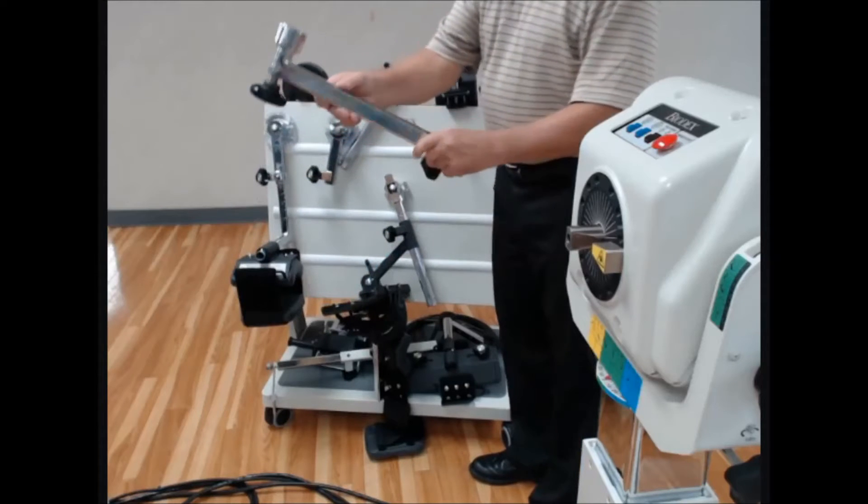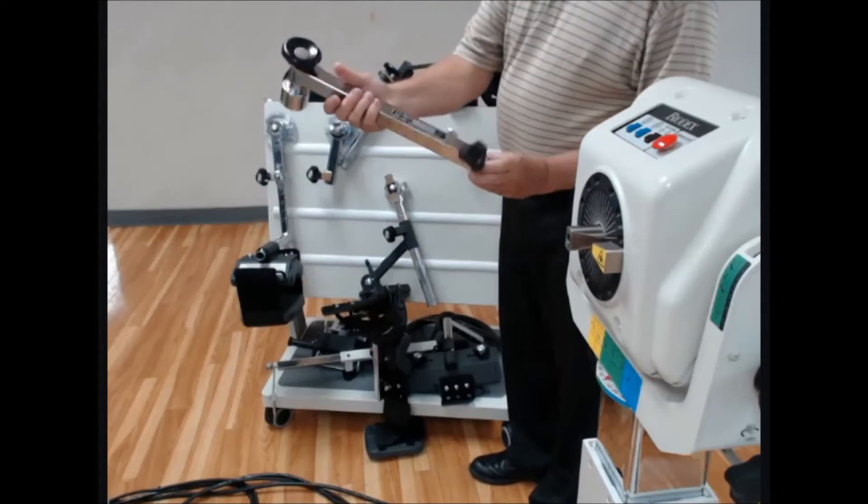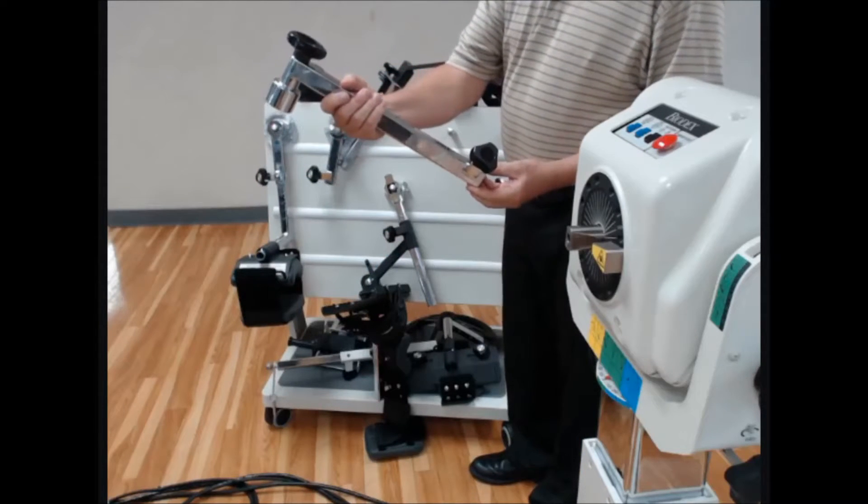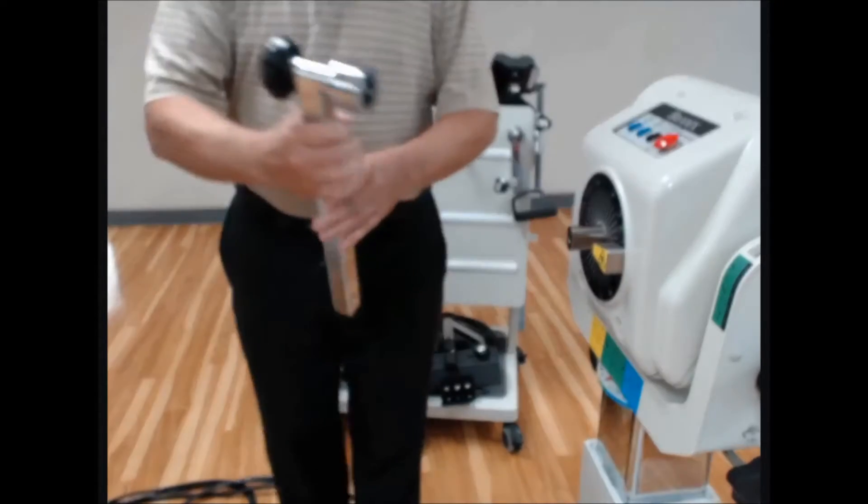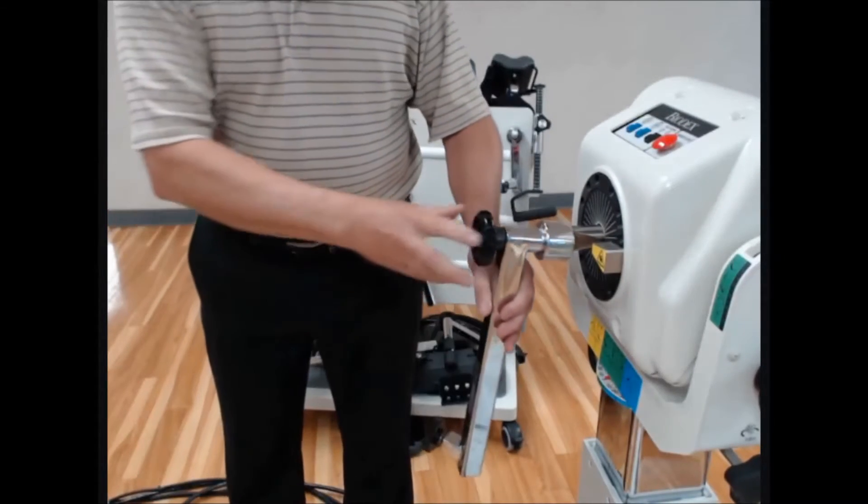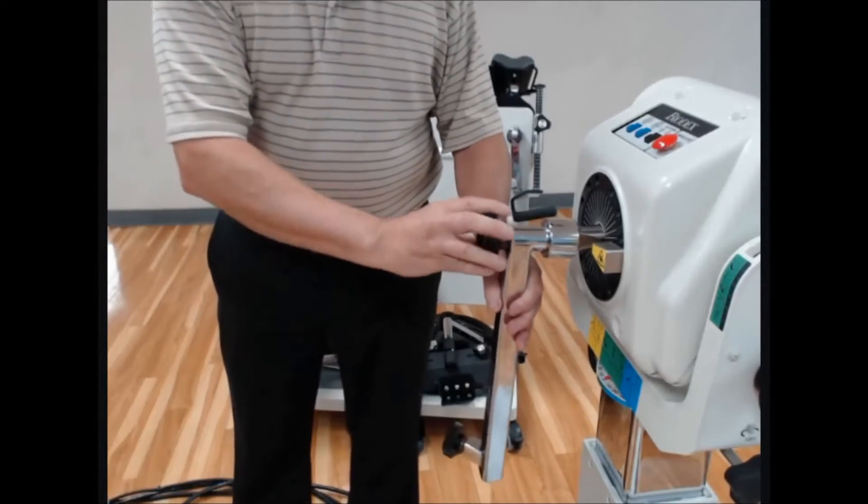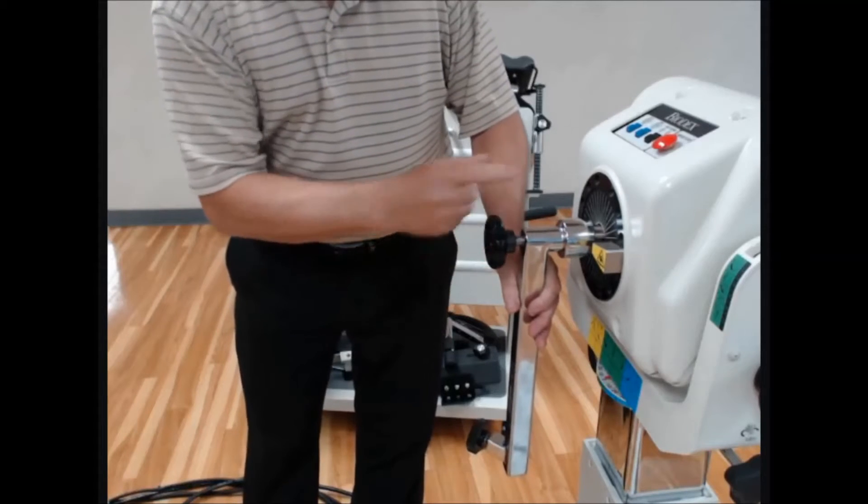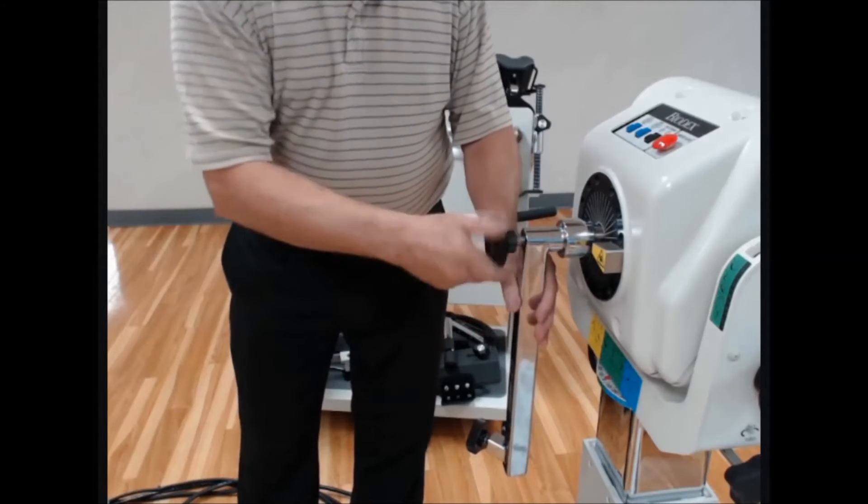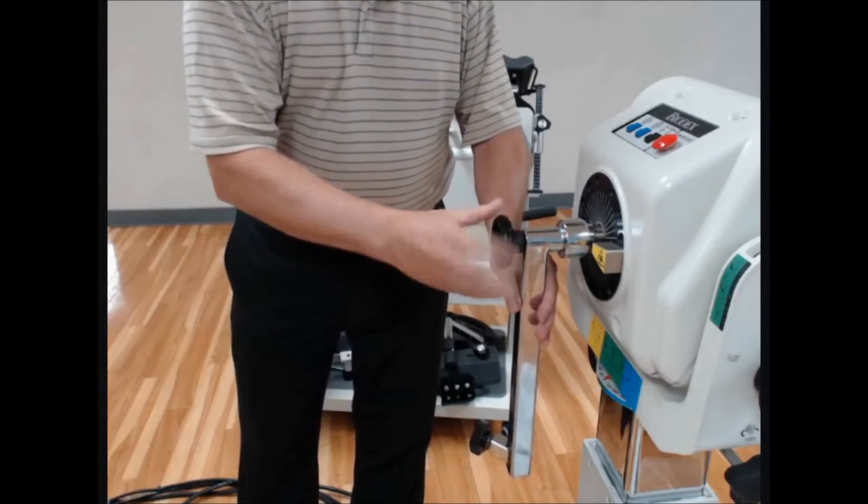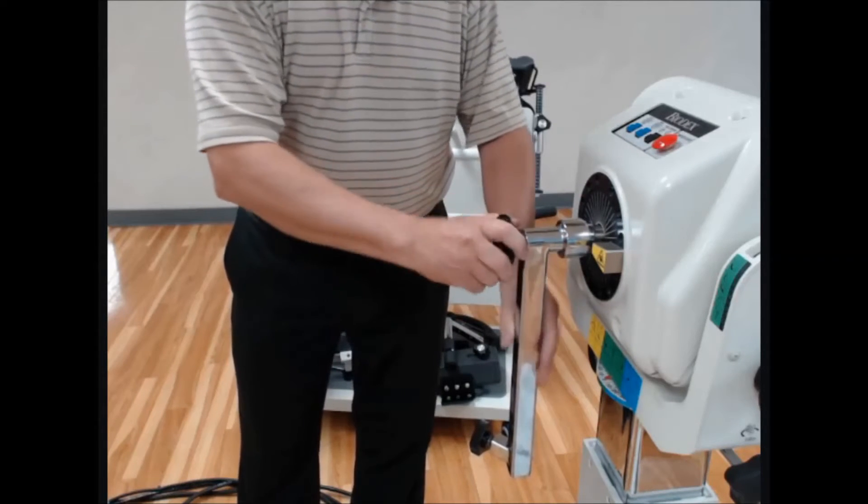This is the correct shoulder input tube that we're going to be using. You're going to be attaching this to the shaft, lining up the dot on the dynamometer.